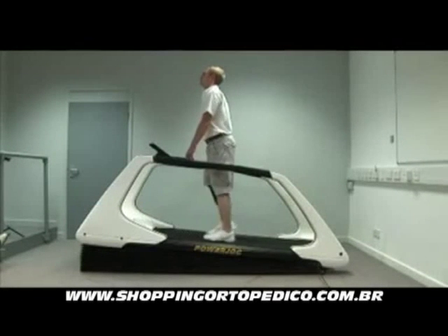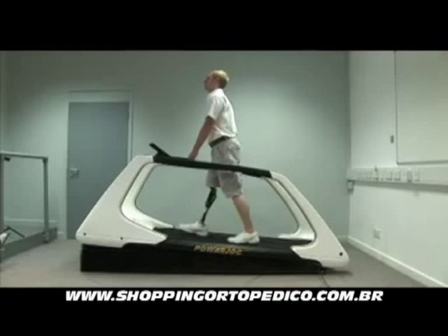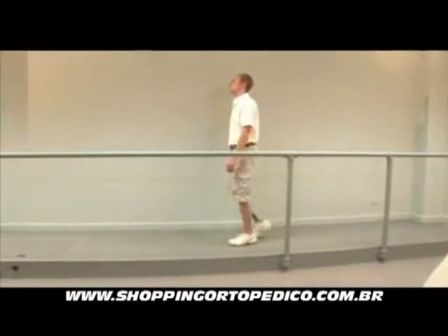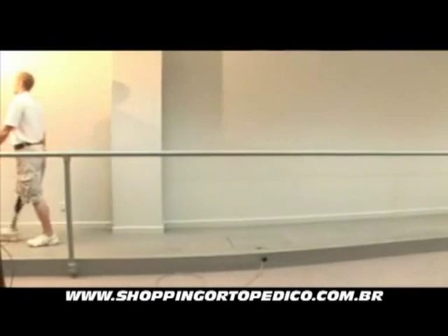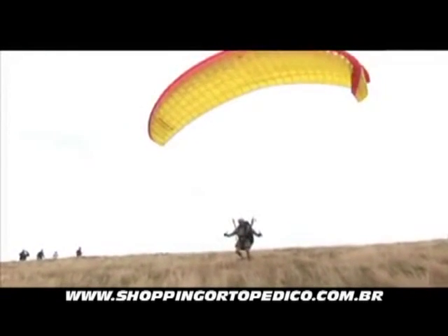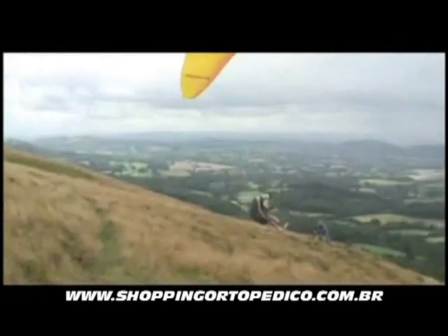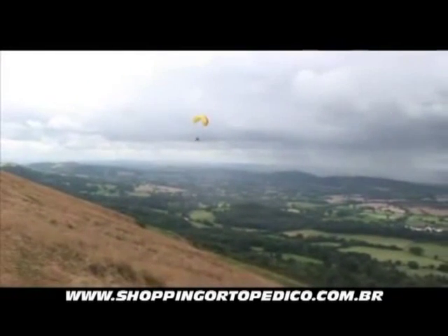With your leg, it affects everything right through your pelvis, up to your back and your spine and through to your neck. It's very symmetrical and level. It was very surprising that that came from just a foot. Having a limb that is more natural in the gait means you're not having to adjust your gait to suit the limb — the limb suits you. You feel more comfortable, and therefore you're more happy to do things with it.